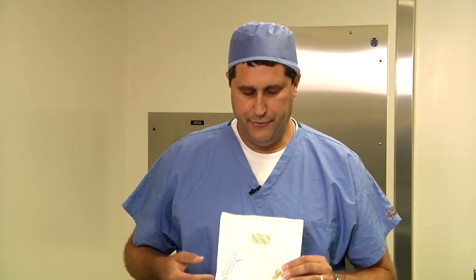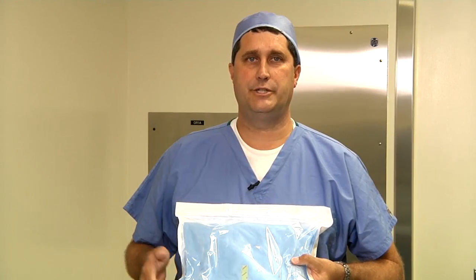We're ready to assemble this tubing pack onto the HT2000 device. There are two additional components within the kit that we are going to set aside. The first one is the recirculation line, which will get assembled onto the device. The second piece is the IPH table pack, which will get handed up to the sterile field when they're ready to accept it. Now we'll place the tubing pack onto the HT2000 device.